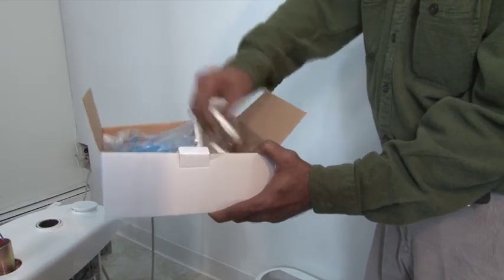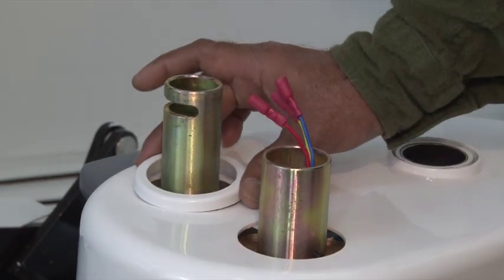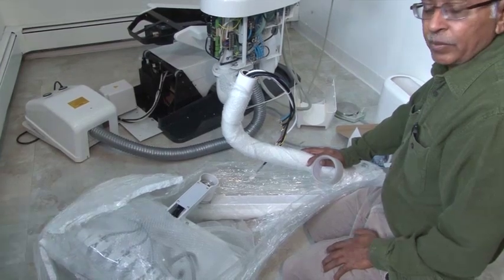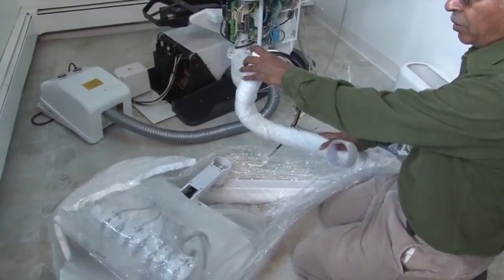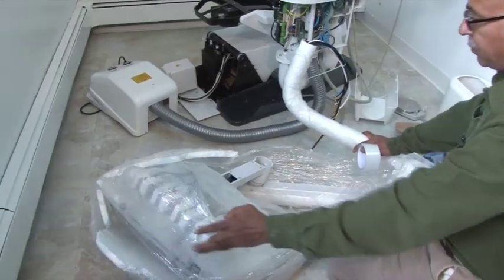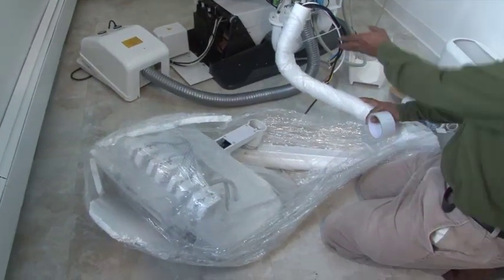Open the accessory box and identify the two plastic rings that go into the light pole and the delivery tray holder. Now take the delivery tray and tie the arm together using a strap. We recommend using an assistant to help you install this tray.